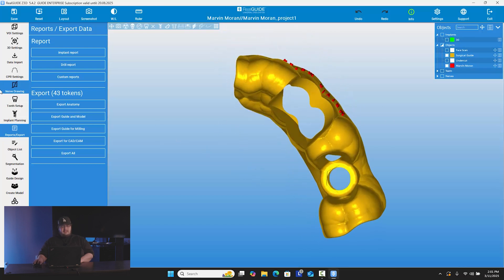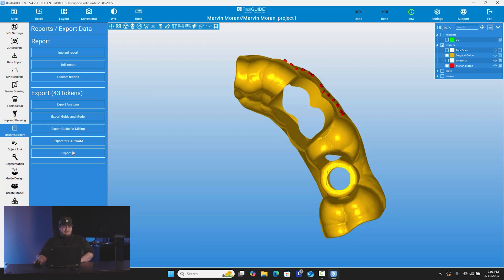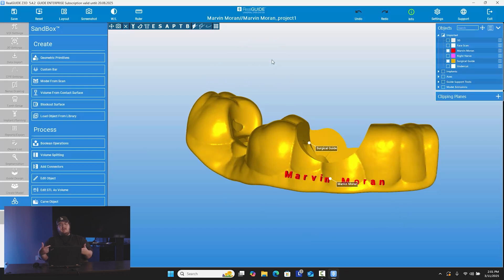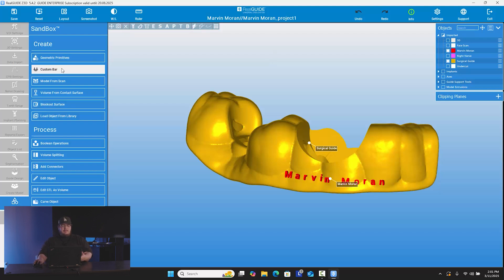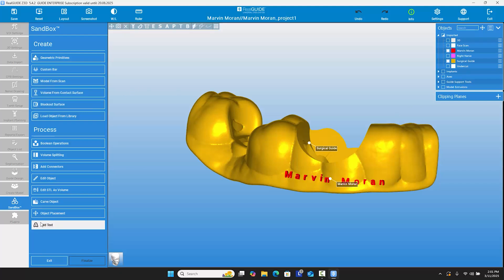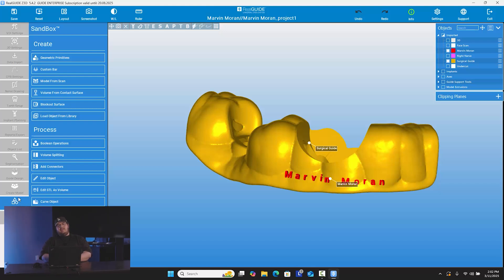Going back to the different steps, not going in too much detail because these are freehand tools you can use to alter things — you even have one called sandbox. The best way I can explain it is almost like an STL object manipulation app, kind of like Meshmixer, where you can actually come in and start adding different things. You can add custom bars, edit the object, add spacers, add more text, carve the object, add connectors, add support bars, and so on. So that's something really good to know. If for any reason you want to cut the guide shorter, add more text, or whatever it may be, you can do that here in sandbox.